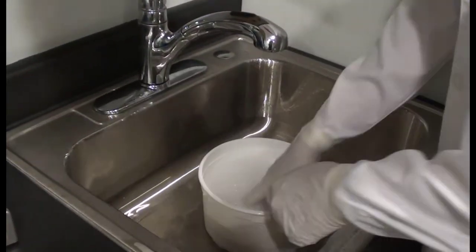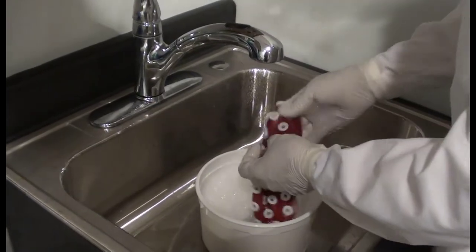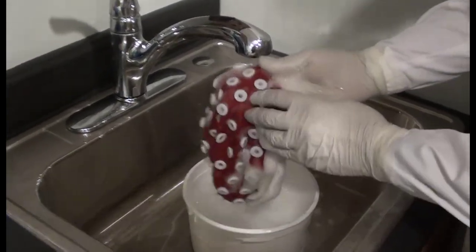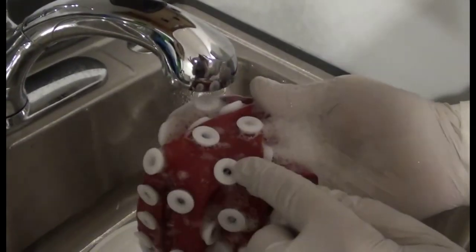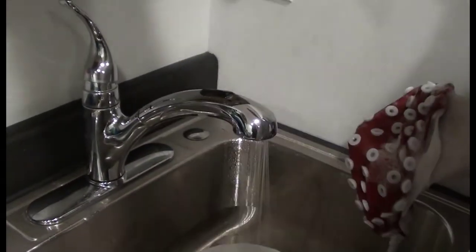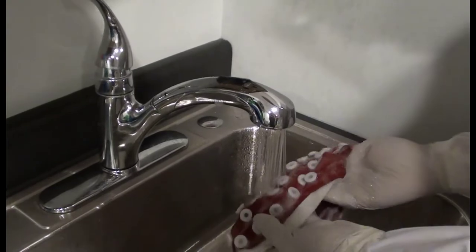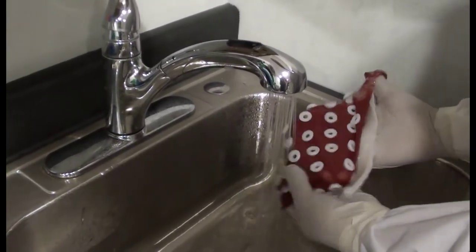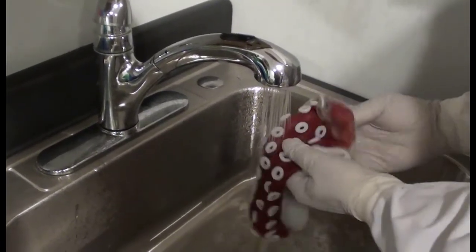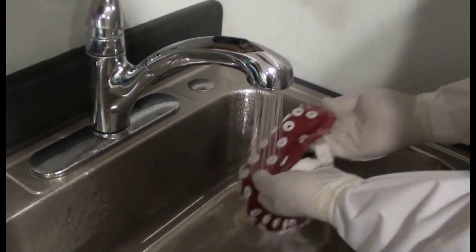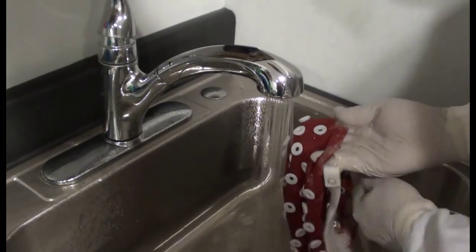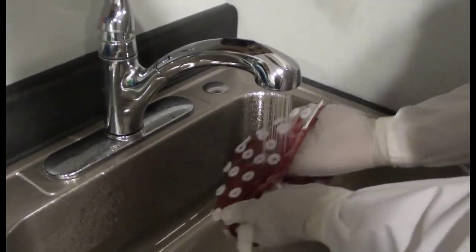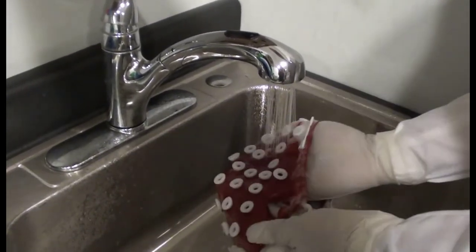Now it is time to return to the cap, which has been soaking for a few minutes in warm soapy water. The gel should be well dissolved by now, and it should be easy to wash away. The spray head faucet can be very useful in washing the cap since it helps to break the surface tension of the viscous gel, aiding in its removal. Wash the cap inside-out first, and then rinse and inspect the outside of the cap. Keep repeating the process until you see no more evidence of gel in the electrode holders or on the fabric between the holders.